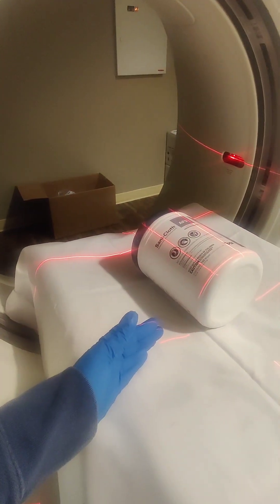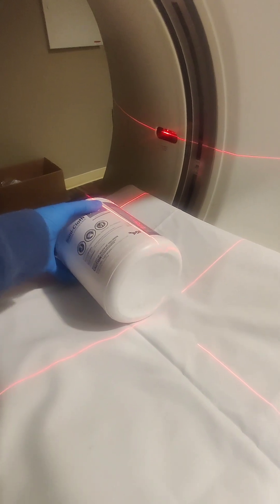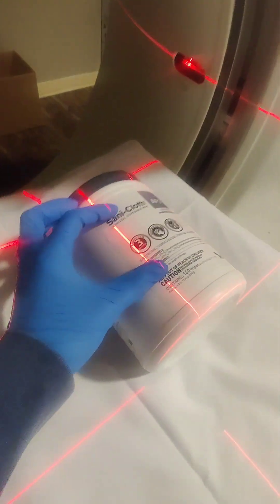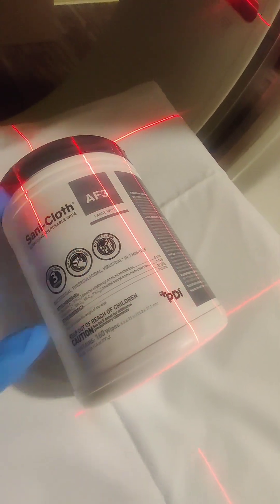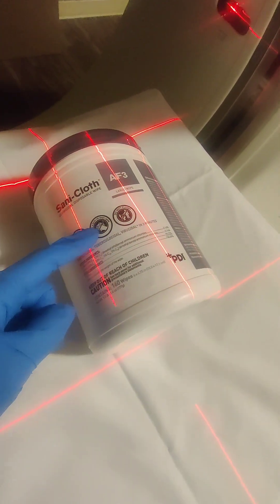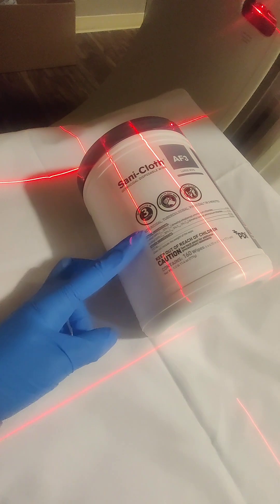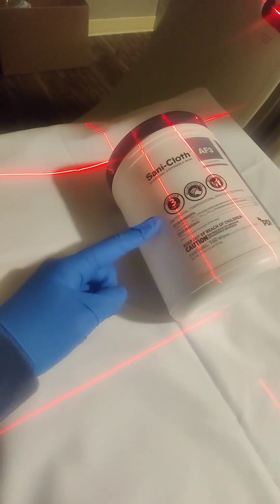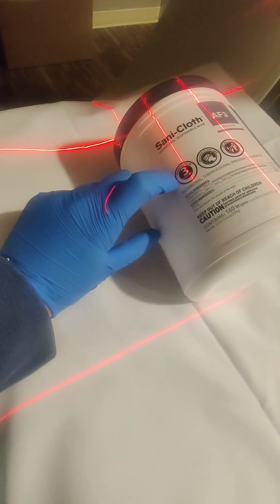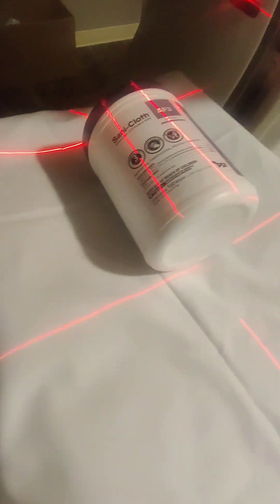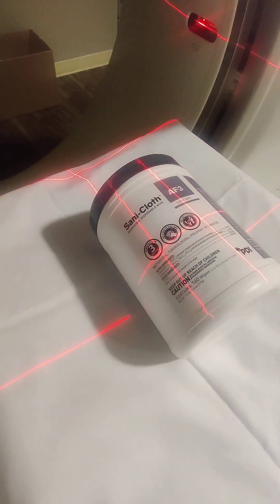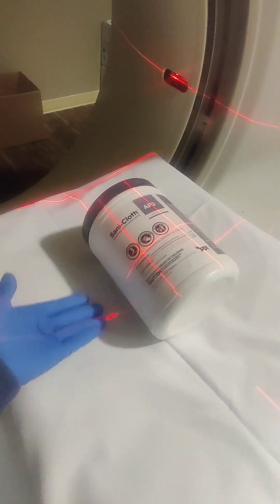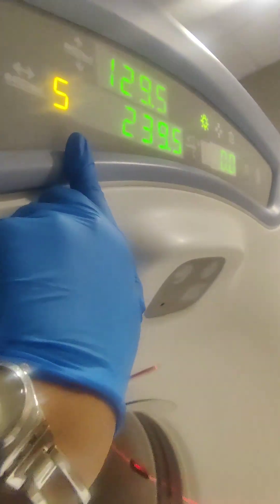If you use the outside, let's say you're going to do a head. Normally, let's say these are the orbits. This thing has three eyes. So let's say this is an orbit. Normally, it's the OM line. Orbital, meatal line. Orbital, and the meatal is the ear piece. So under the eye to the ear is where the line's supposed to go. Essentially, if you're using your outside light, that's the outside light right here. Once you set it to zero, it's going to be set as S239.